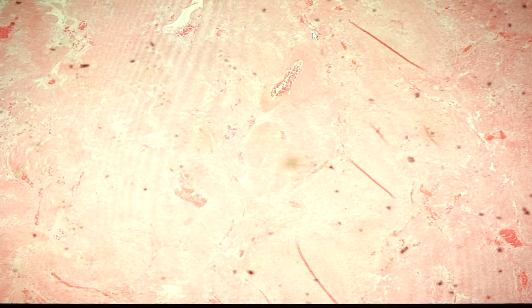Hello class, we are going to discuss four slides for this session. This is a continuation of the benign mesenchymal tumors. We have slide 210 that is schwannoma, slide 95 lipoma, slide 166 that's cardiac myxoma, and slide 144 this is hemangioma.